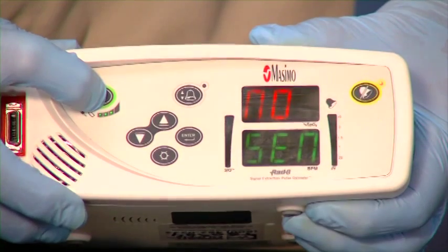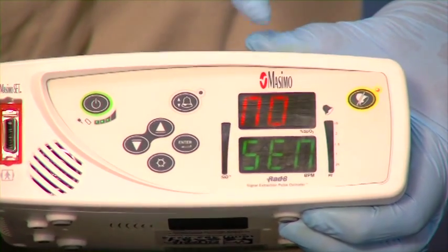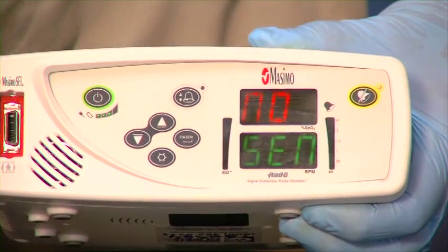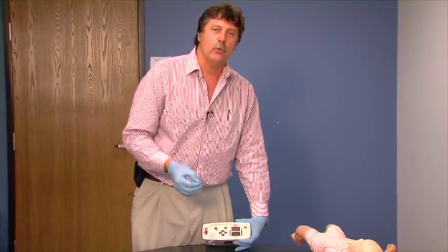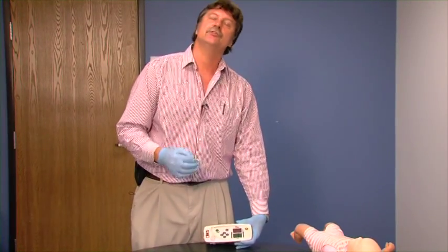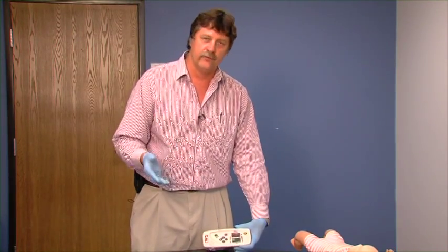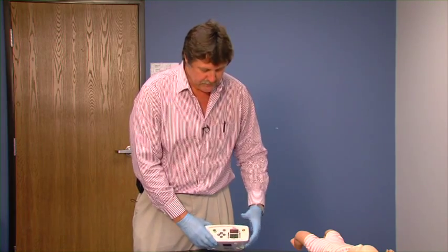Press and hold the on button until the machine comes on. Right now it's saying no sensor because we don't have any sensors hooked up to it. We want to program in our values, and those values should come from the doctor. However, if they don't, we do have default values that we can program into it.